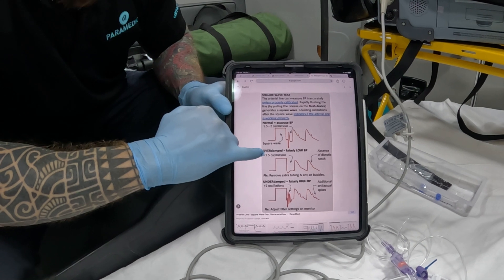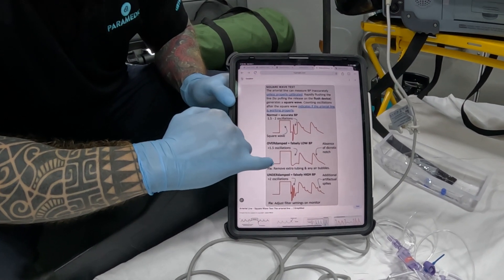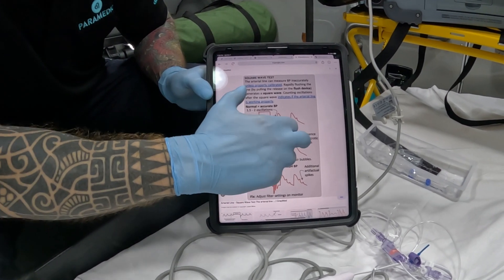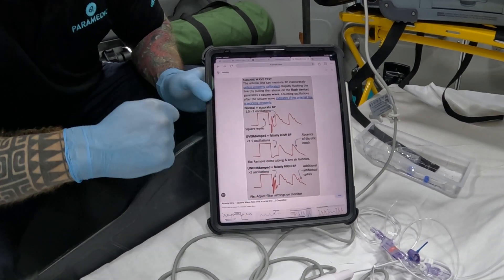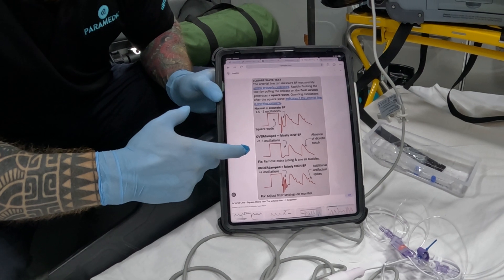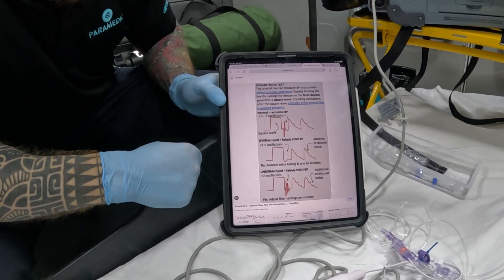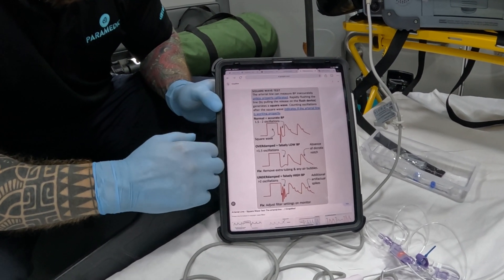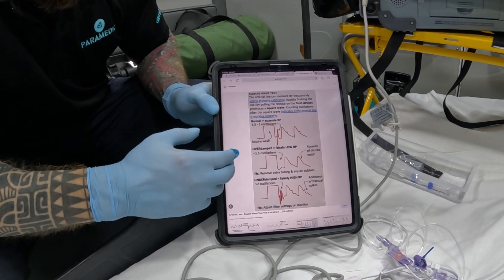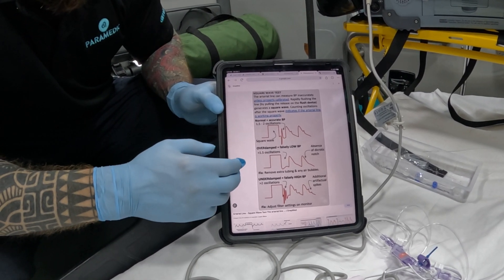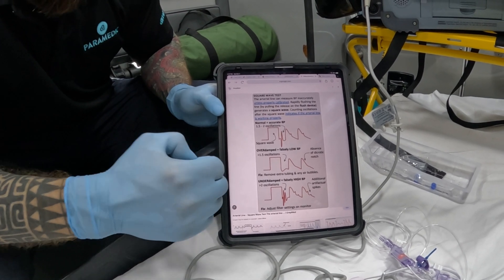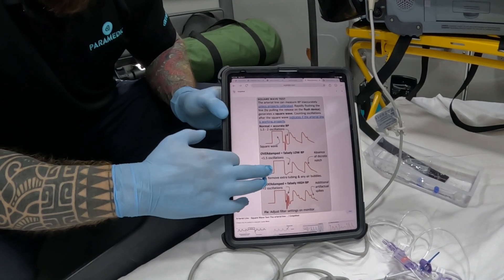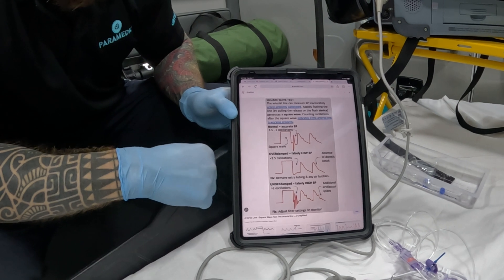If you're overdamped, the reading is falsely low. You'll see the square test but without those two oscillations. The waveform is missing the dicrotic notch — which is normally the closure of the aortic valve — so it's absent on this diagram. Common causes include extra tubing, air bubbles, or blood clots in the tubing. What you're looking for when you snap the square test is 1.5 to 2 oscillations. If those don't happen, check for extra tubing, air bubbles, or anything like that.